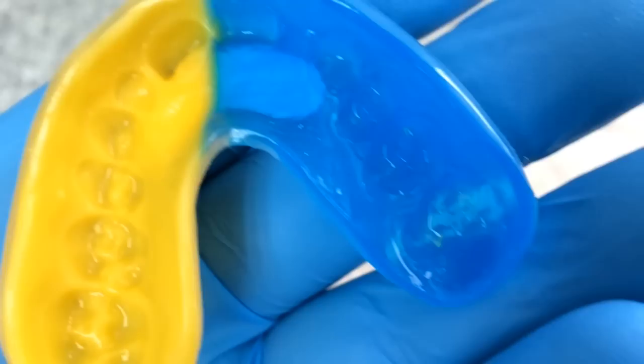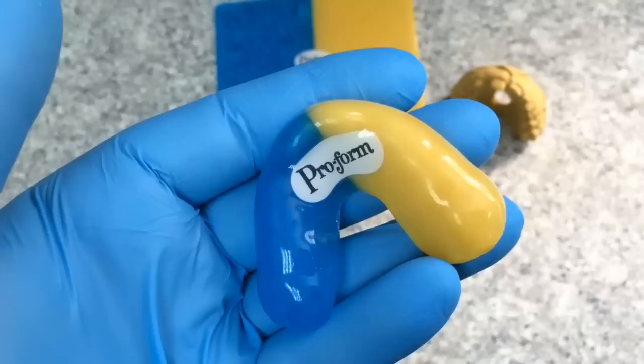That is as close as you can get around your teeth. So this mouth guard is going to stay in the mouth much better. The kids not going to chew on it as much or have a chance of slipping out of the mouth.